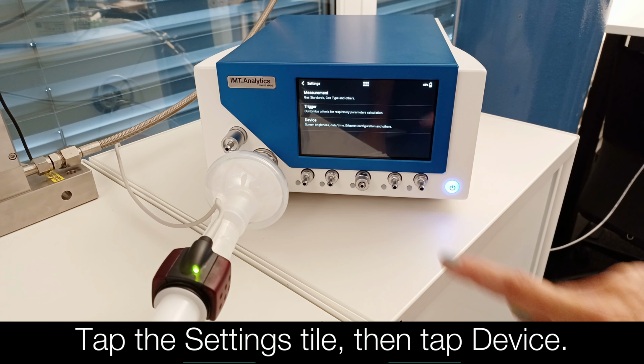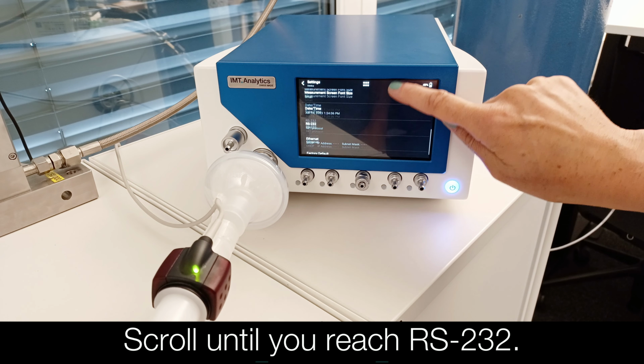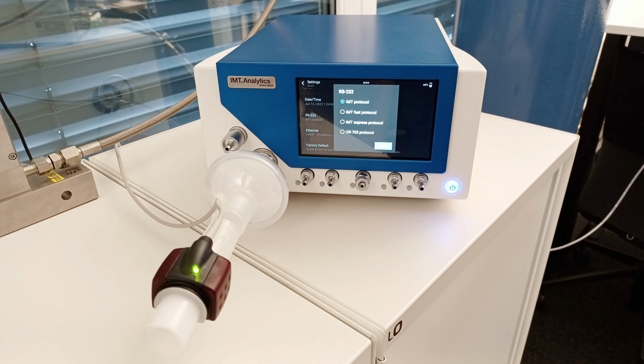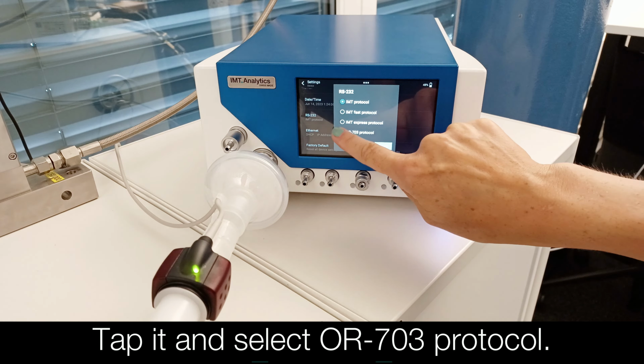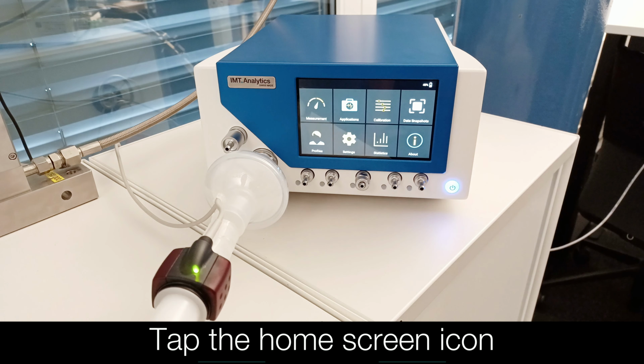Tap the Settings tile, then tap Device. Scroll until you reach RS232. Tap it and select OR703 protocol. Tap the home screen icon.